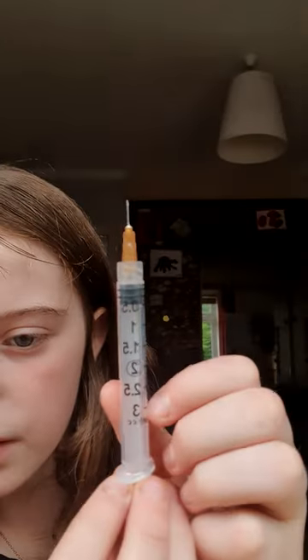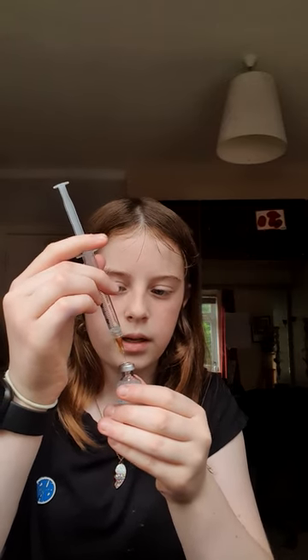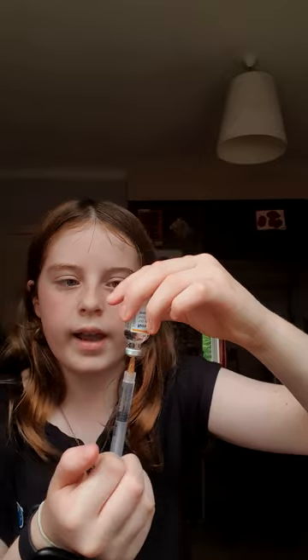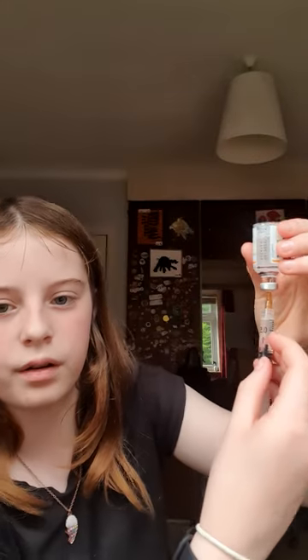Open your insulin. By the way, do not touch anything on your pump until I tell you to. Put the orange lid in that pile. See how there's a number three — you want to pull that all the way to the number three. Then get your insulin — your hands may be a bit wobbly like mine — but just push it through that little bung, turn it like this, and push all that air into there. You'll maybe see a stream of bubbles. Then just let go of the bit at the bottom and just watch it go down of its own accord.